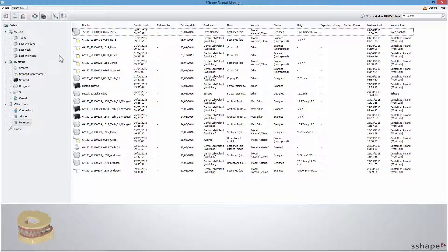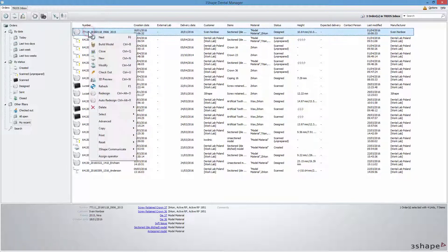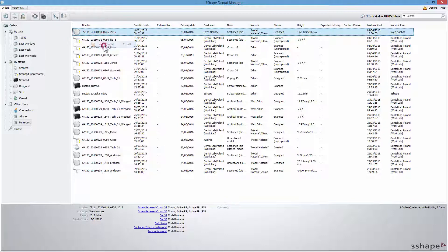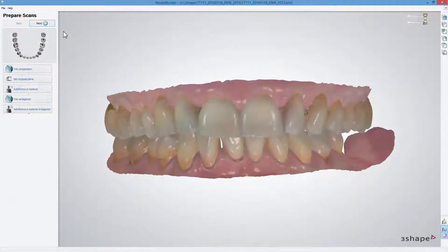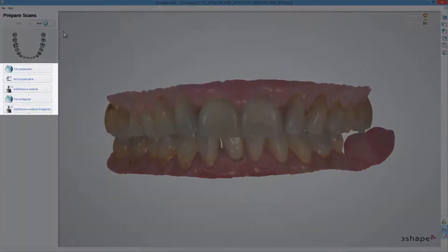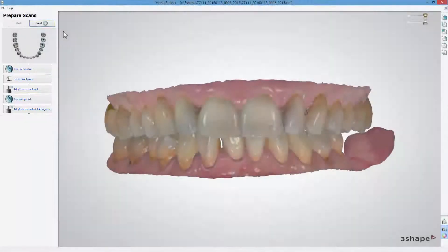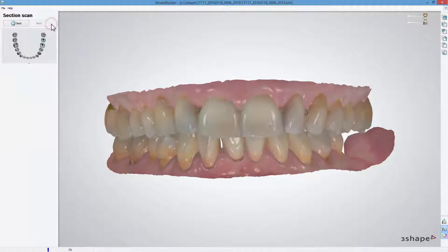To open a prepared order and start creating a new model, from the right-click menu in the Dental Manager list, choose Build Model. This step is optional, but if you need to, you can go through the Prepare Scan steps, and if corrections are required, repeat the preparation steps done in Dental Designer. Whenever you are ready, click Next to go further.